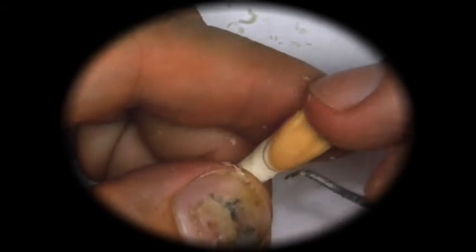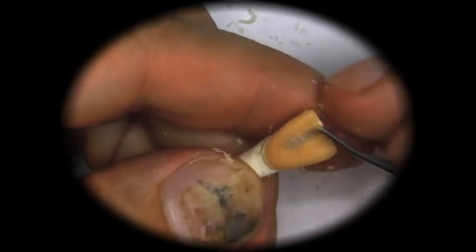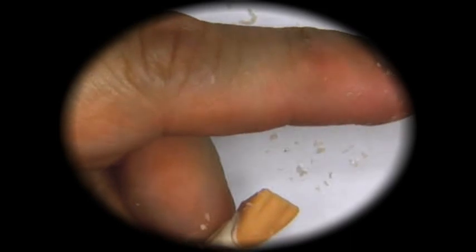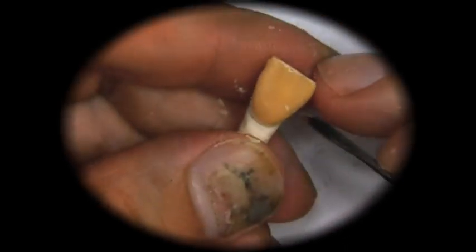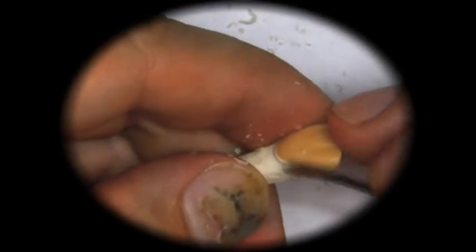You can also think about what types of instruments you can use to create the different shapes. Convex instruments you can use to create concave shapes, and concave instruments you can use to create convex shapes. So if we have a convex instrument, an instrument that curves, we can use the convex side to create a concave shape right here. So if we carve here with the convex part of the instrument, we can create our little S shape.